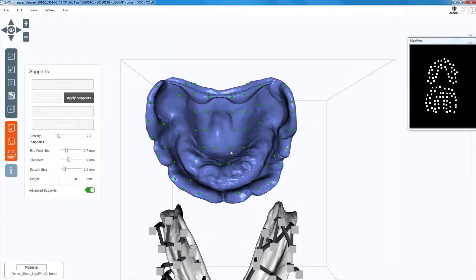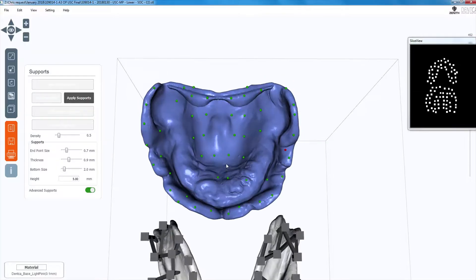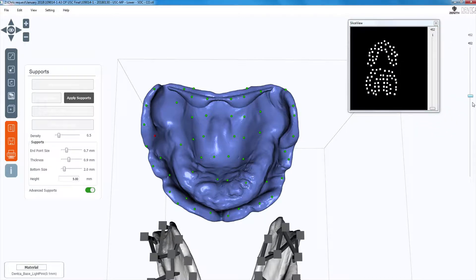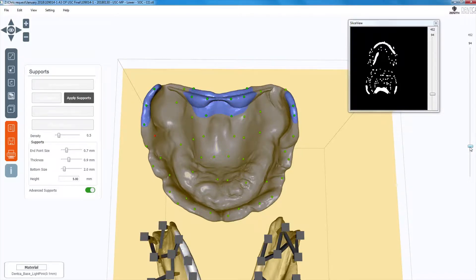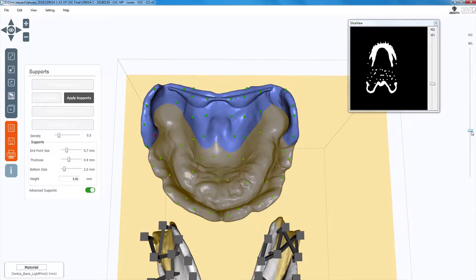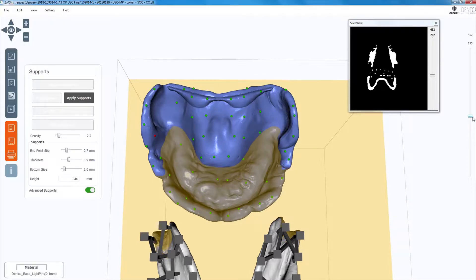After generation, click on edit supports. In this mode you can rearrange the existing supports by moving the green dots around, delete existing supports by selecting them and clicking the delete button on your keyboard, or create new supports by clicking on a blank area. Clicking on a particular support will change it from green to red to show which one you are working on.